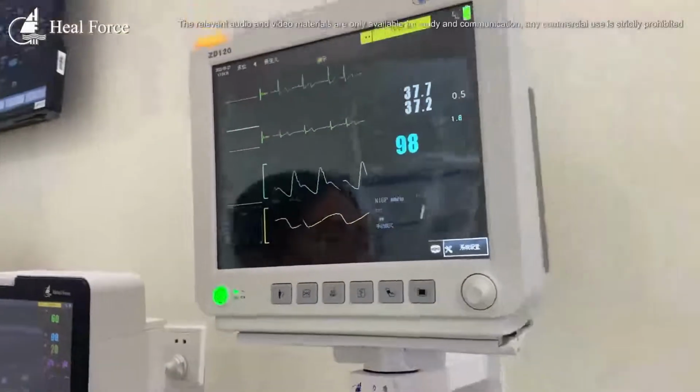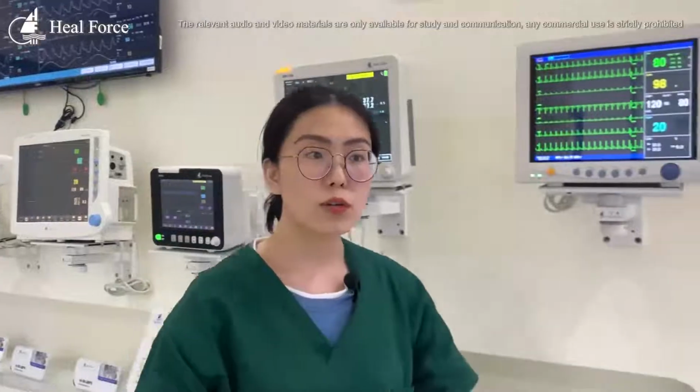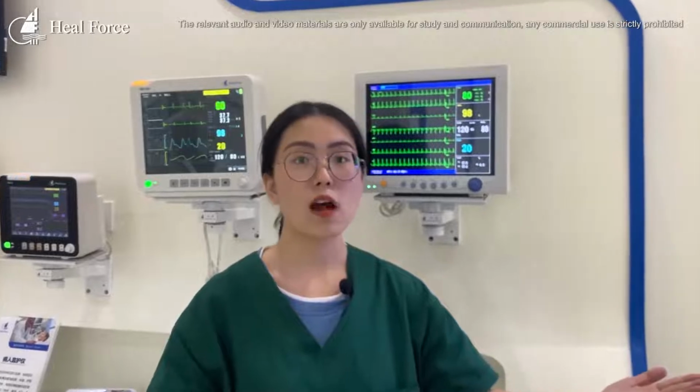Okay, that's all. I will show a video about the ZD120. It will help us better understand this machine.